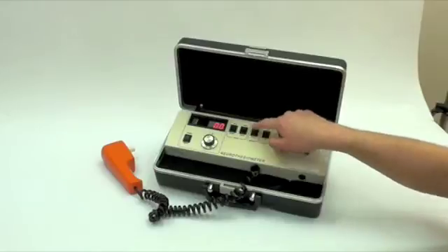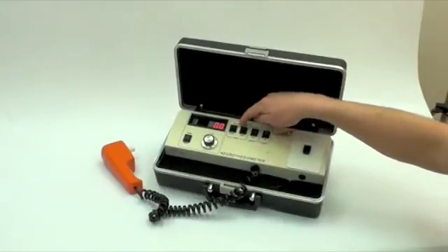That switch should be turned to store, this switch to normal and that to volts.